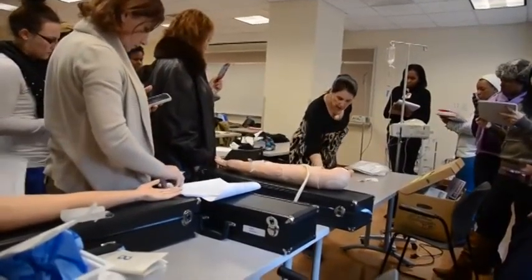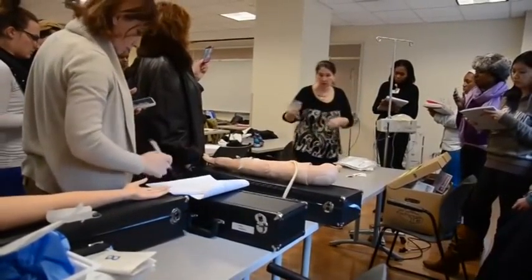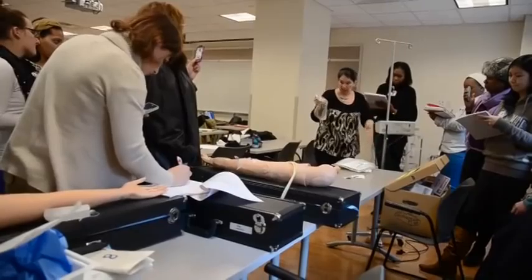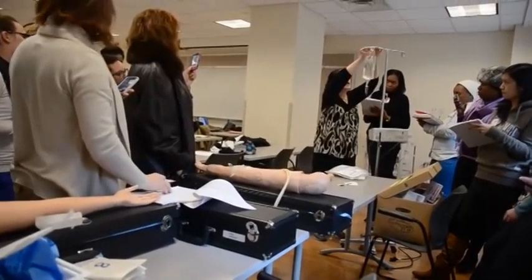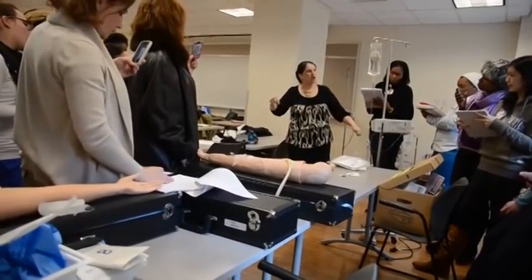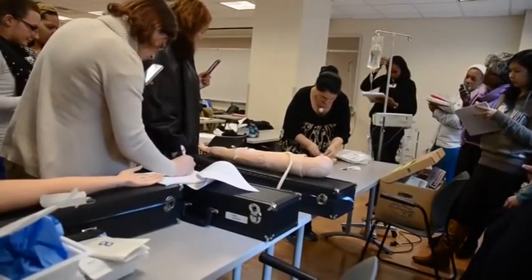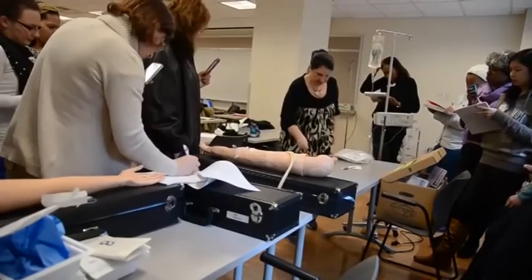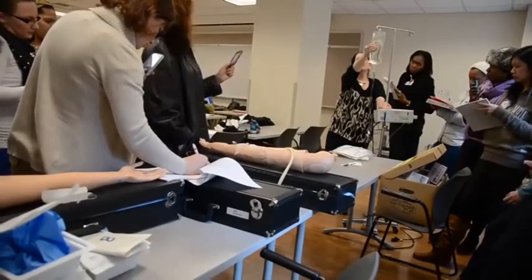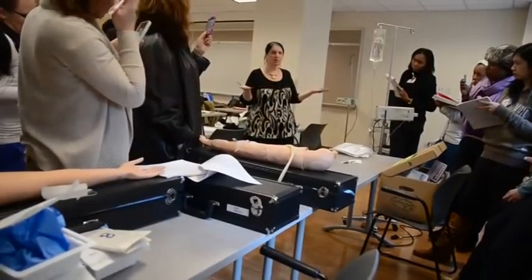Now I'm going to walk in to number two. So let's say you picked number two — we have a different scenario. Now I walk in and I find a patient not hooked up to a pump, but has an IV running. So this patient — you walk in and there's an IV running. This has to be open. This patient, no pump, has D5W running at 75 an hour. Now I have a different scenario altogether.